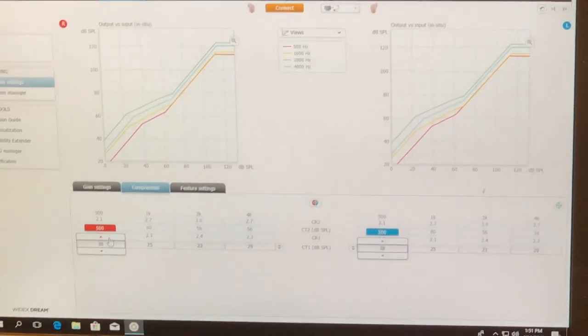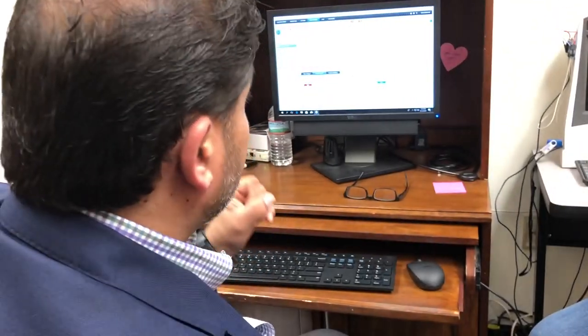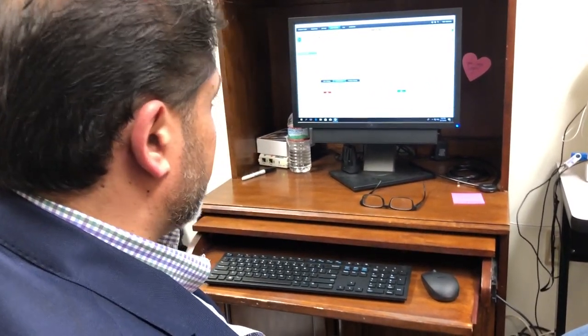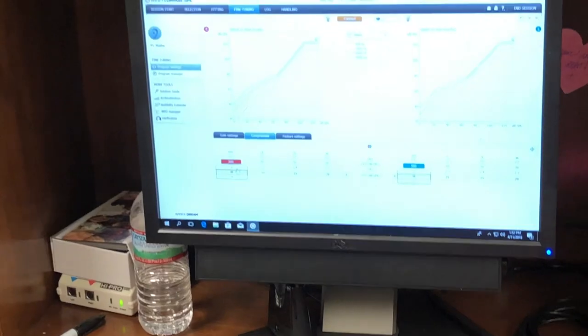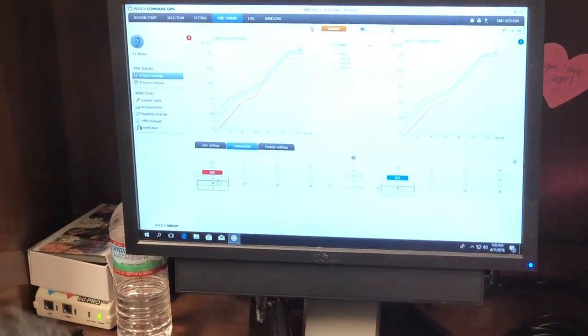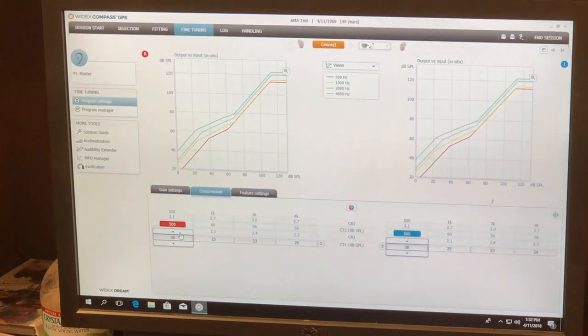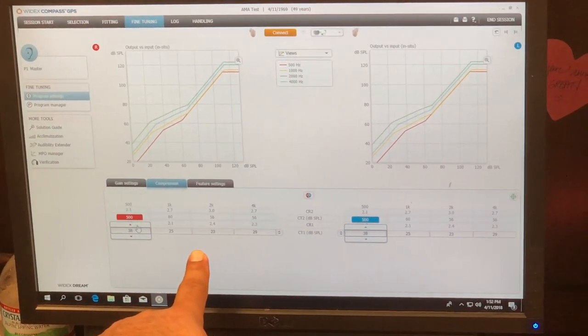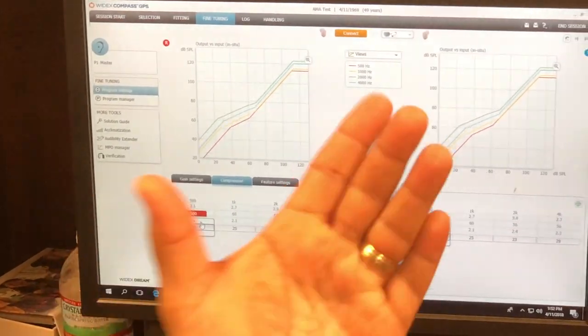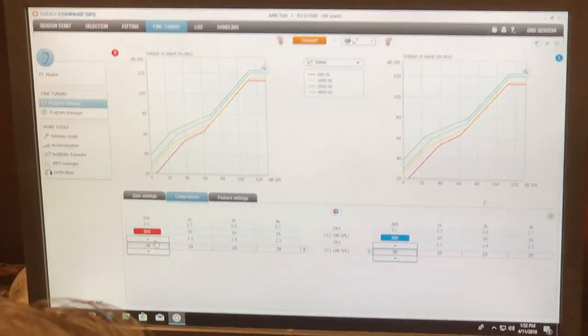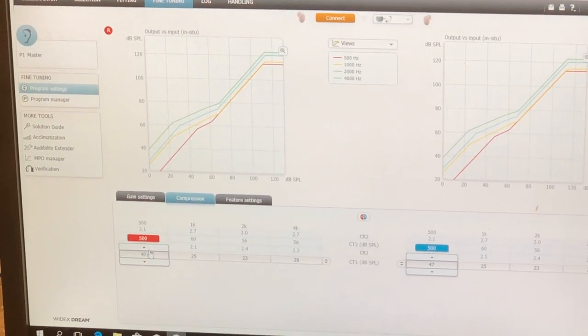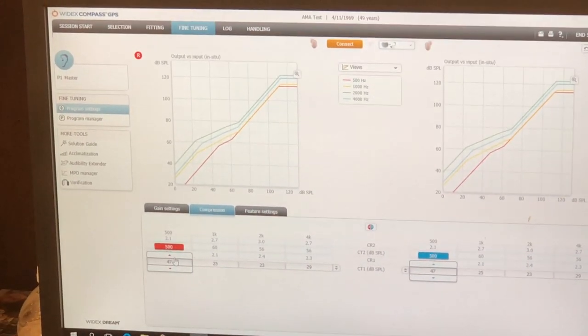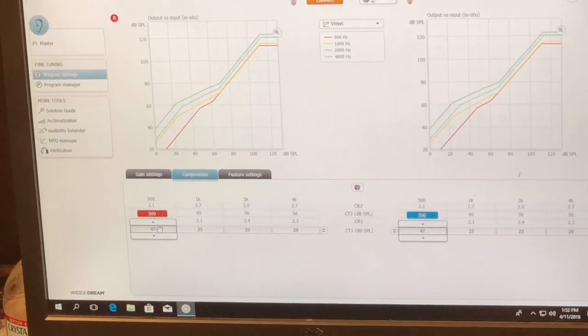So if Katie comes in and Katie is my patient and Katie says, you know what? I absolutely loathe the refrigerator sound. The humming sound. Low frequency. What can I do to eliminate the gain in that region for her? I can do it two ways. I can do it this way or I can pull the gain down. I don't ever touch gain. The only thing I touch is compression. So I'm going to go into 500 hertz and am I going to increase the knee point or decrease the knee point? Increase it. So I'm going to increase it and by increasing it, let's say I've got to get past this 20. Katie now doesn't hear that refrigerator noise. And I didn't do anything to gain. It's automatically going to change the gain for me.